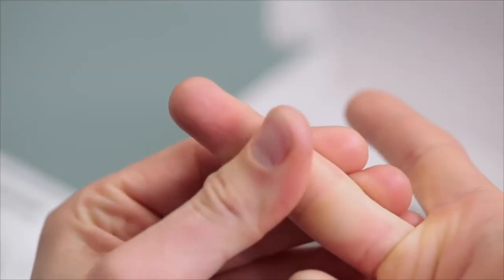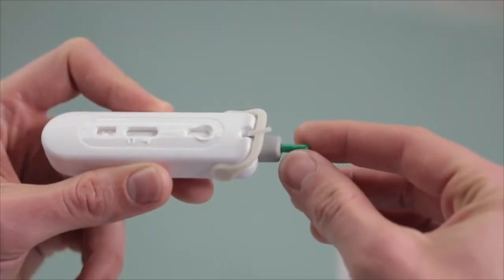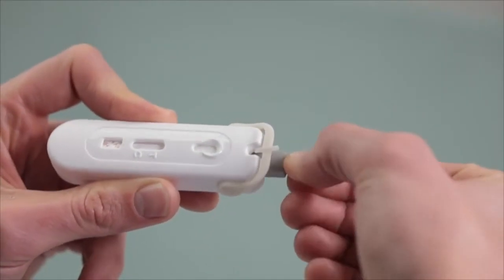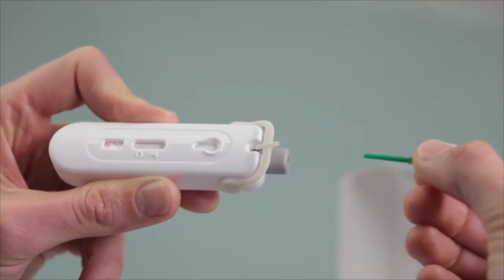Select a finger and firmly massage it for 5 to 10 seconds to get the blood flowing. To remove the green tab, first gently turn, then take it out. Now discard it.